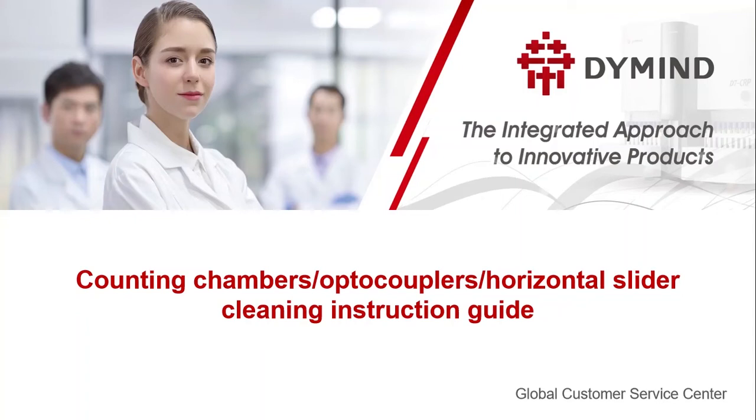This video shows how to clean the counting chambers, optocouplers, and horizontal slider.